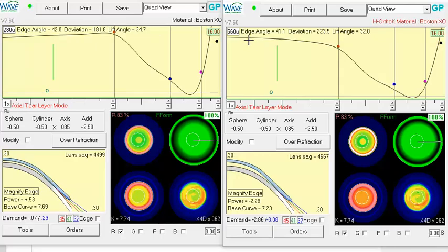From my understanding you want to bring back down the edge angle to lower that edge lift at the very on the right lens. The easiest way to do that is either pull down on the black dot or you can click down on it.